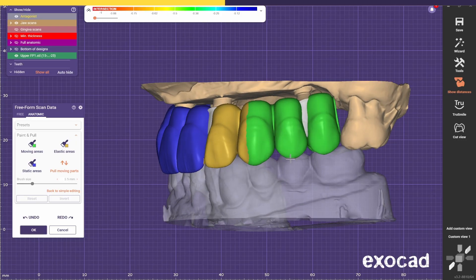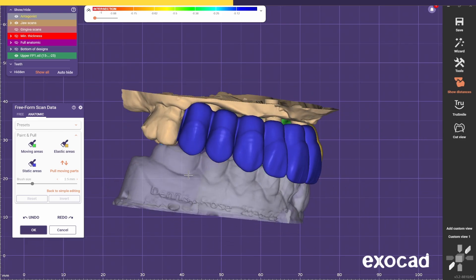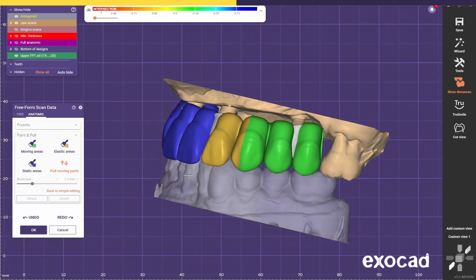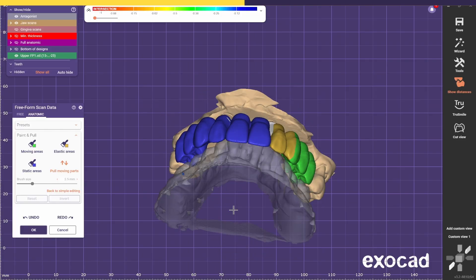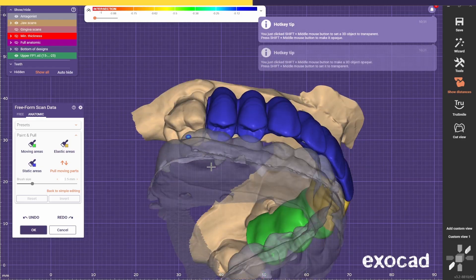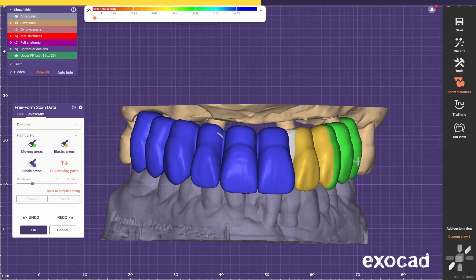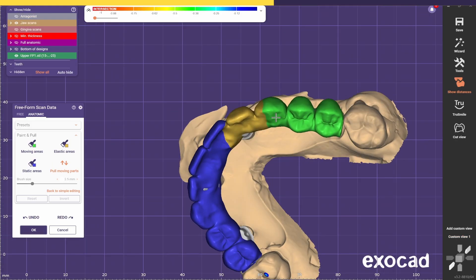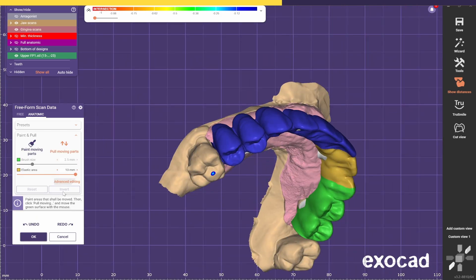You see the occlusion is not going to be ideal — you have these gaps. It would probably need another tooth on each side to make this in correct occlusion placement, but this is going to be a 10-unit bridge and we're going to stick to the number of teeth. On this side it's almost perfect — it's already in contact almost. If you Ctrl-Left-Click you can rotate the green part. Check with the gingiva. Now go back to Simple Editing.